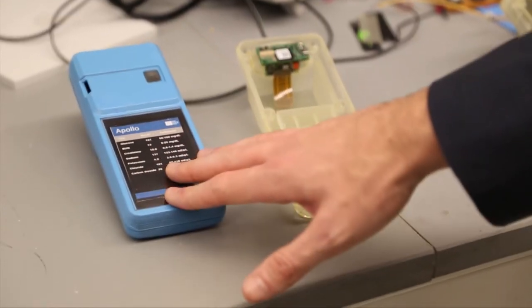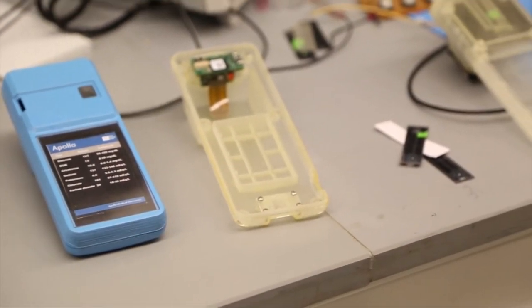So the faster turnaround time allows the doctor or the nurse to treat the patient faster, and our device is also lower cost. It's just a single drop of blood as opposed to sticking a needle into your vein and drawing a vial of blood.